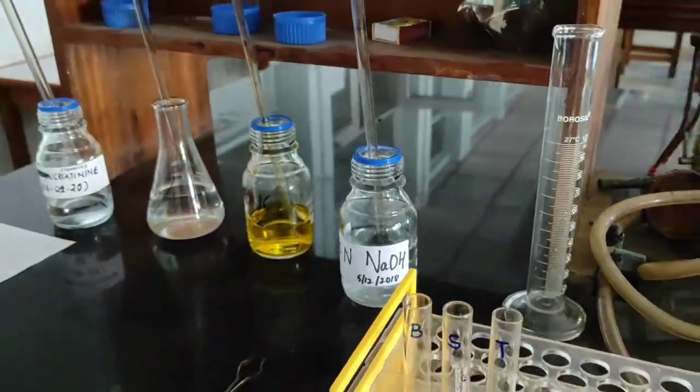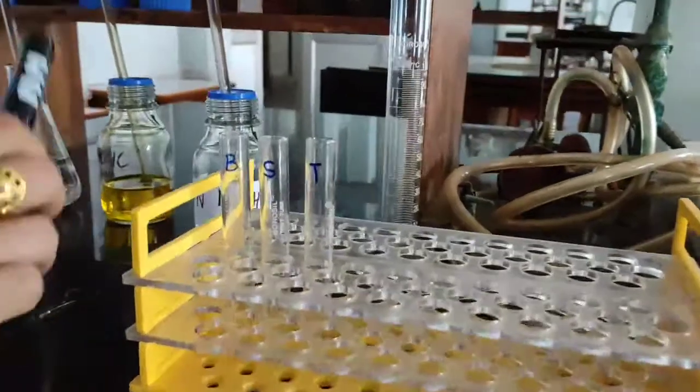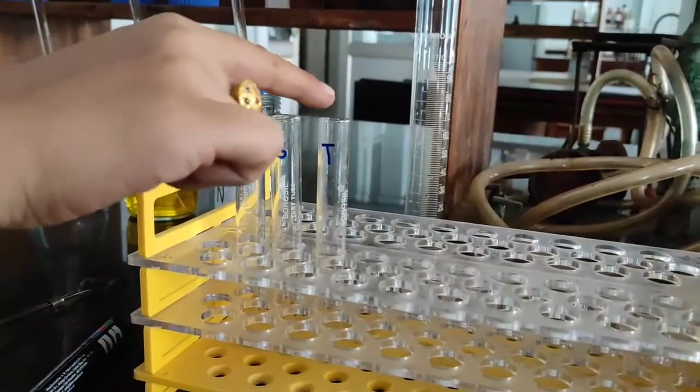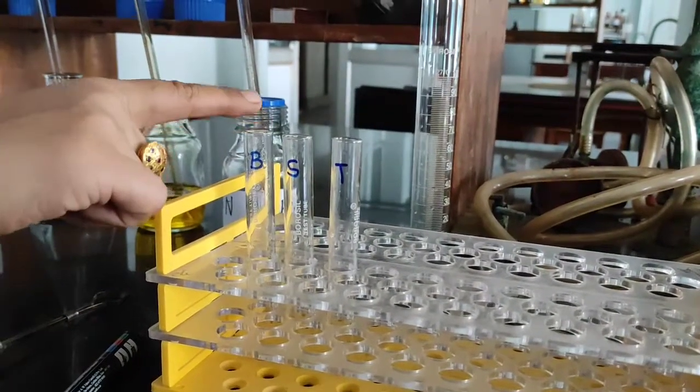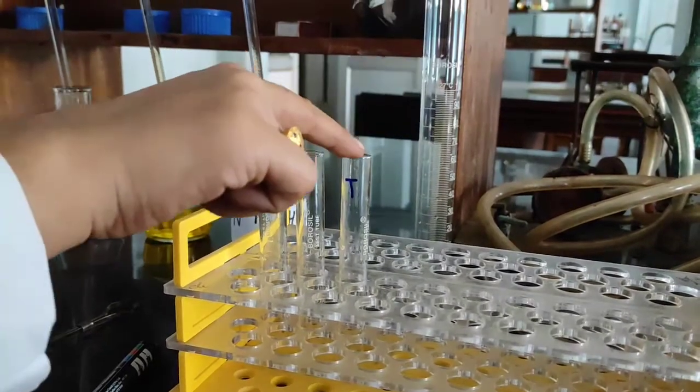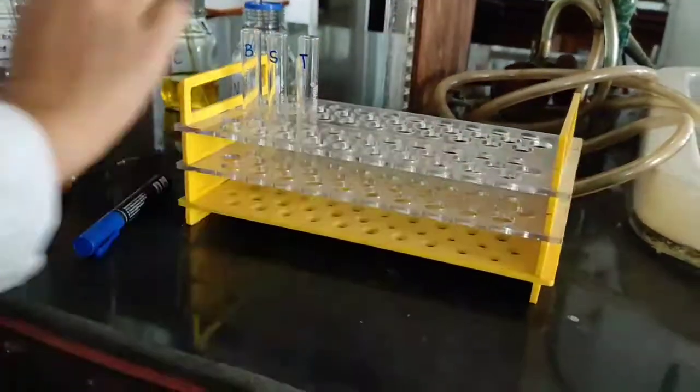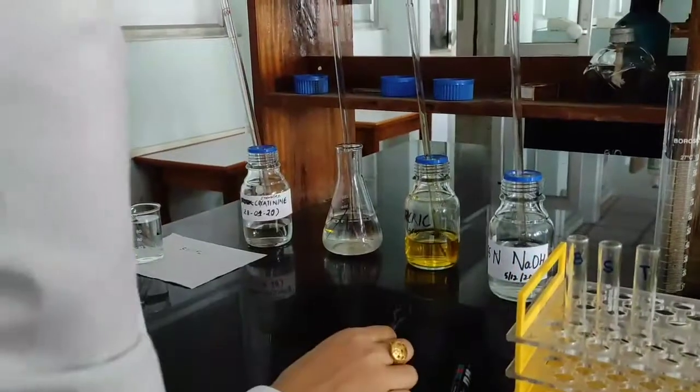For this, I have taken three test tubes with this marker. I have labeled as B, S, and T. B for blank, S for standard, and T for the test. I have taken the test tube rack, I have taken the test tube holder for this.